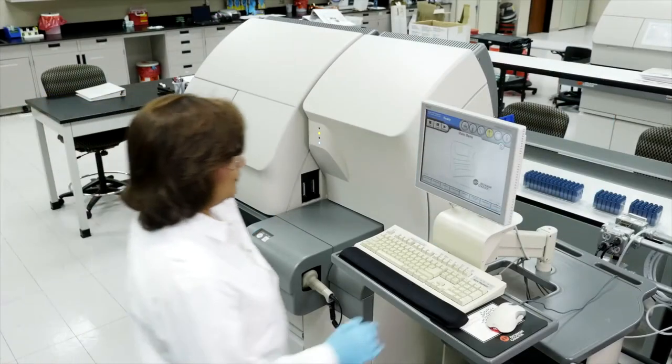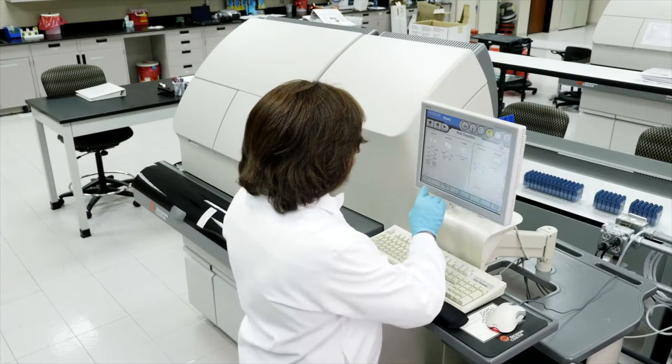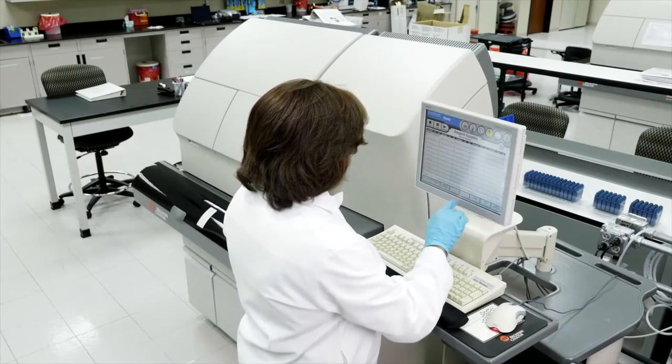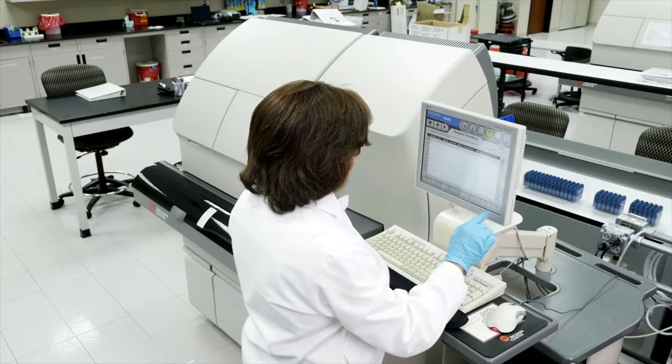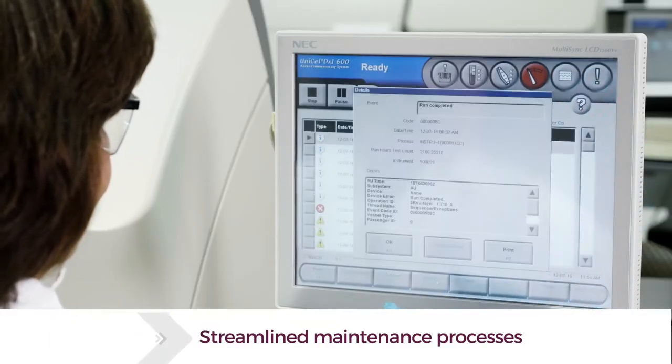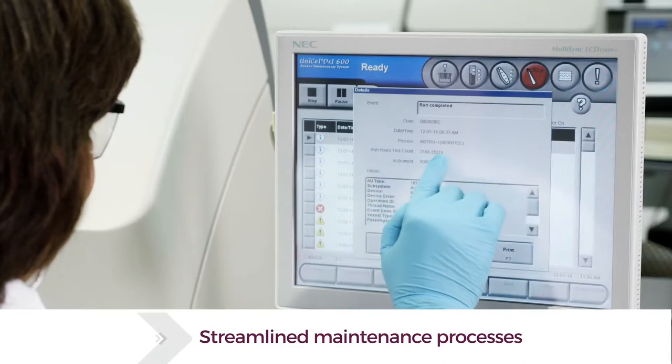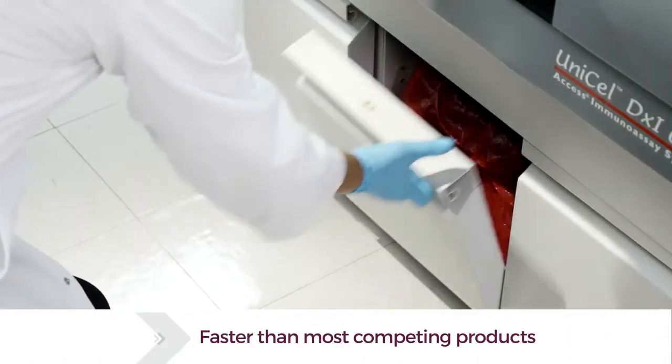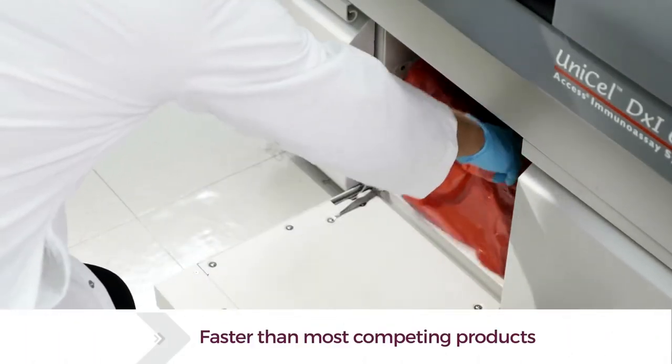One key factor can help achieve all three goals simultaneously: operational efficiency. By streamlining the maintenance process, standard upkeep of these systems now requires less time and effort than most automated immunoassay analyzers on the market.